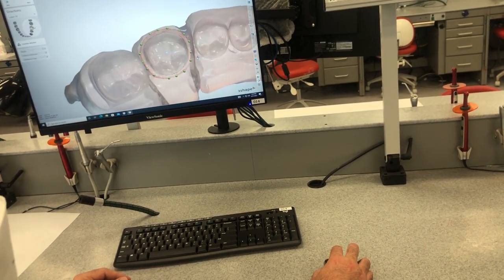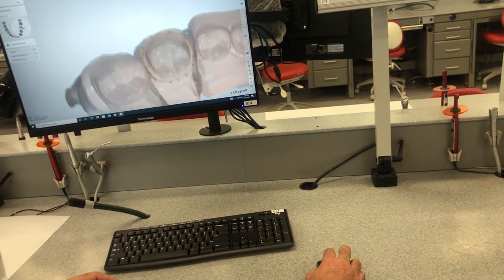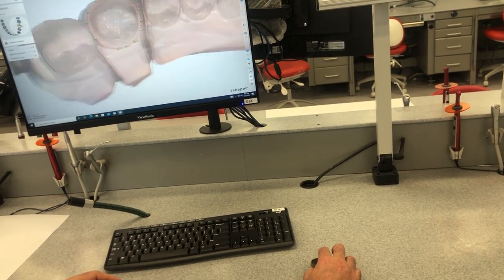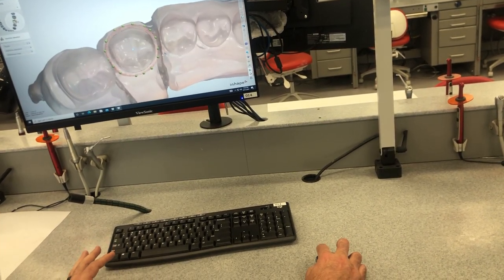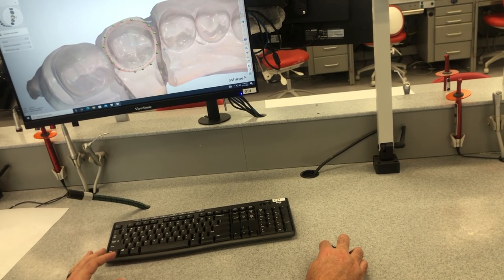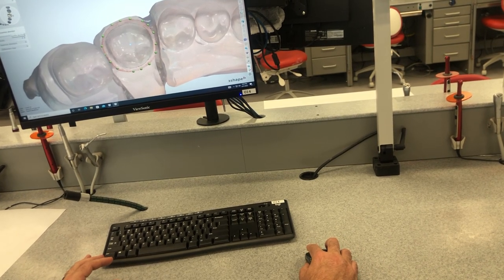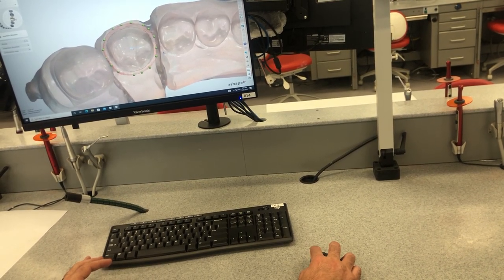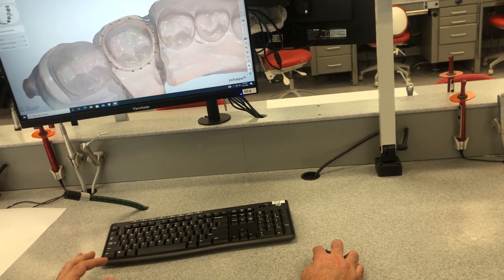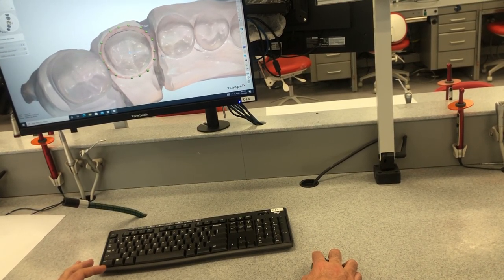If you scroll the mouse or the wheel, it'll zoom in and out. But if you click on the wheel, it'll move it in the same direction around your screen. And then right click and hold is whatever you're trying to do. So right now it wants us to do the insertion axis, so if I left click, it'll give me a new insertion axis. So if I want to change that, I can move it around and put it wherever I want it, and then click on the insertion direction.